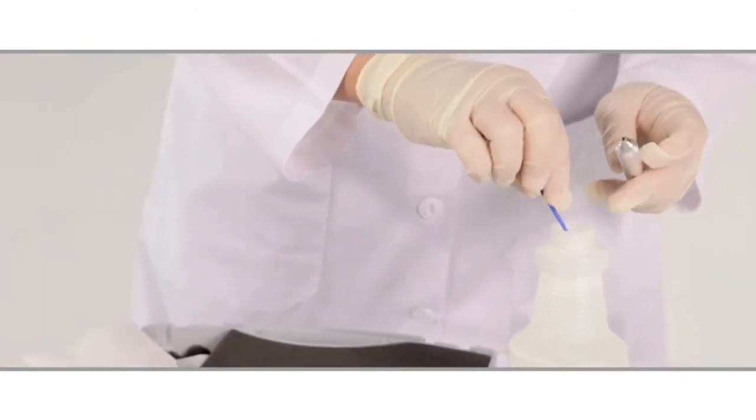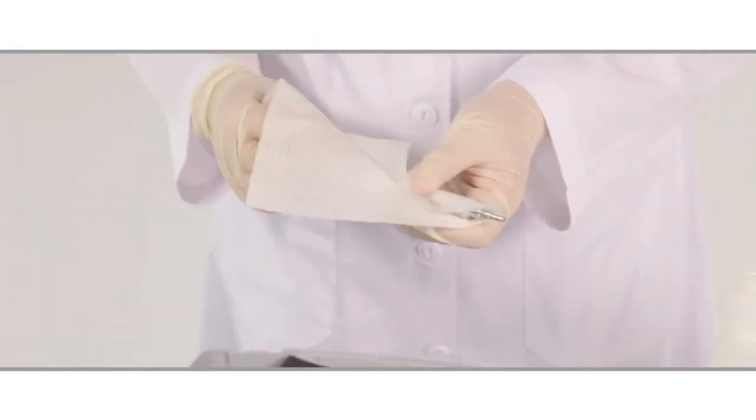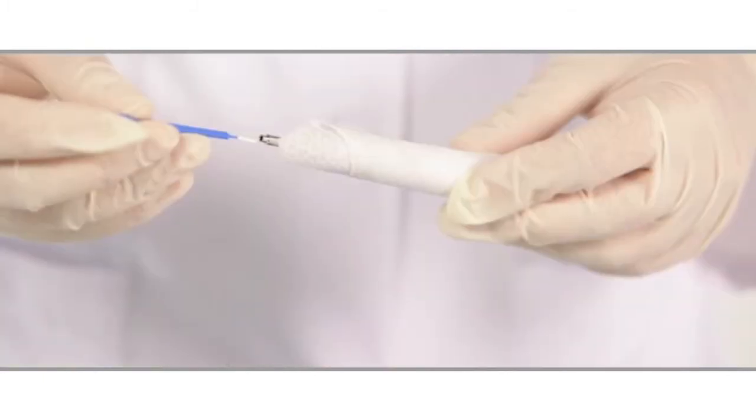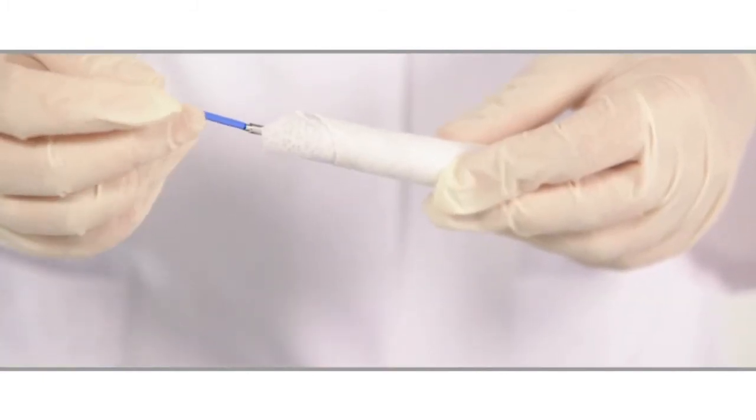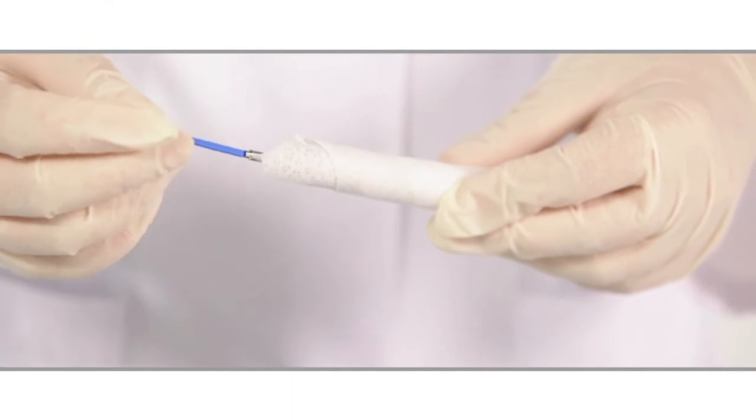To dry your PerioWave handheld laser, use a clean, dry optical cleaning swab to dry the liquid covering the lens and lumen. Insert the swab into the lumen and rotate.